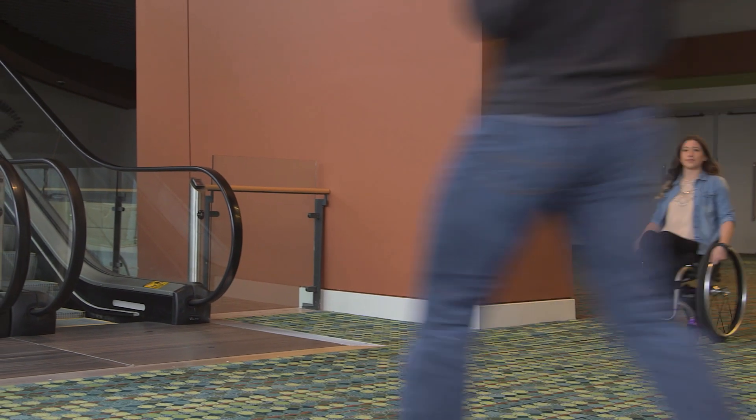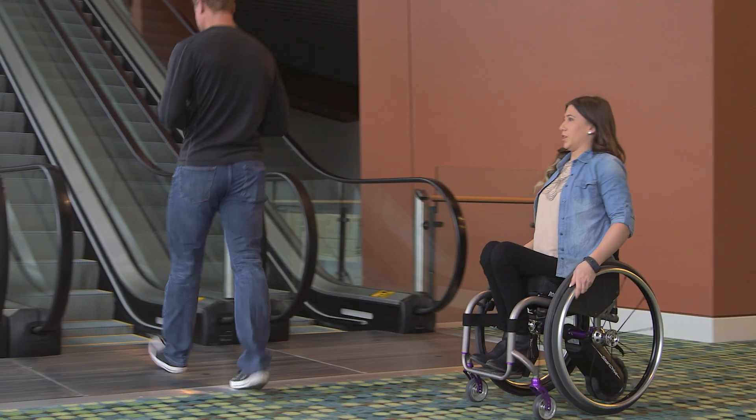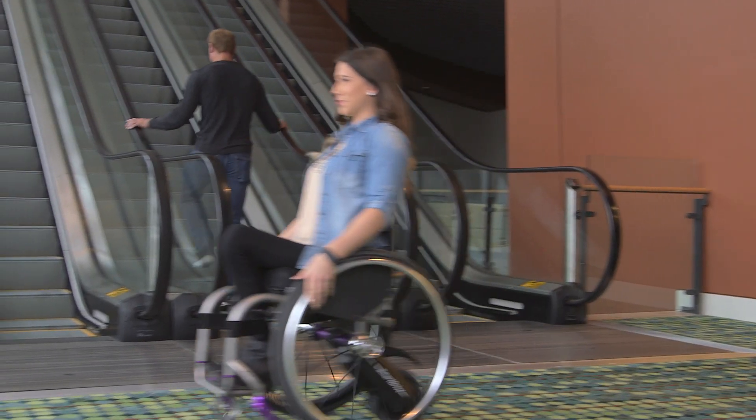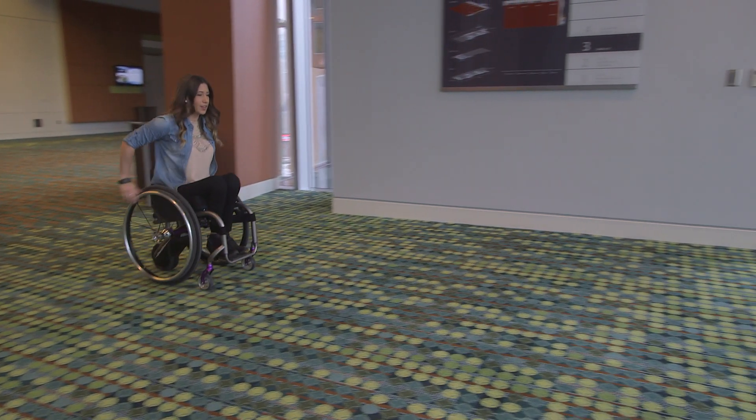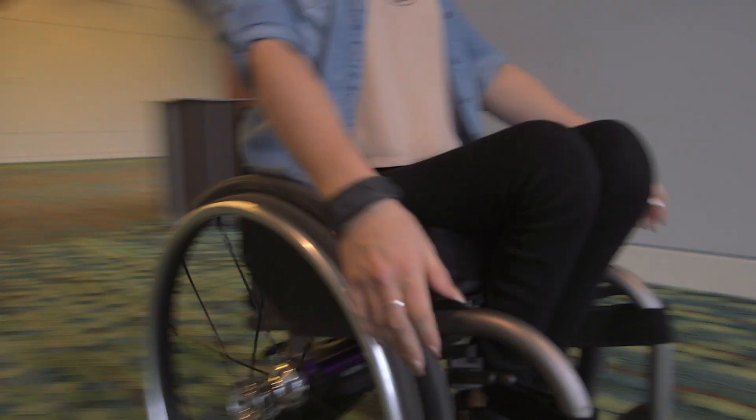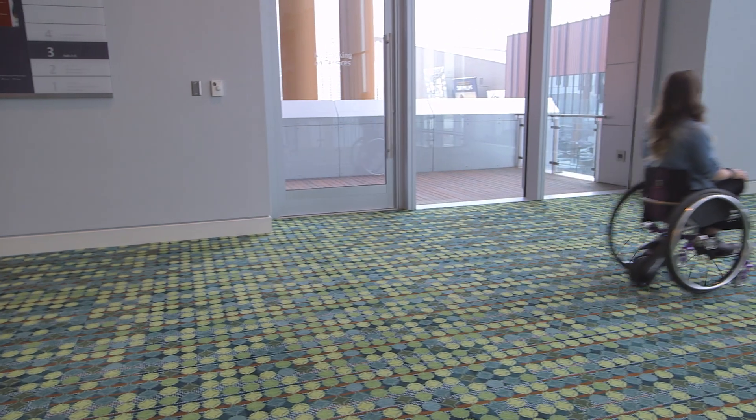In an emergency, you can tap the push rim and brake at the same time by hitting the push rim harder when you brake. If you pump push, you likely tap it off with every push — so just make sure your last push is strong so it'll keep going.